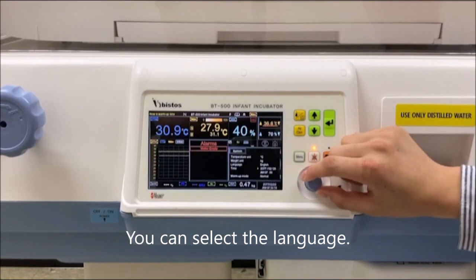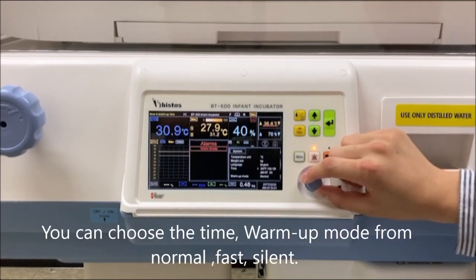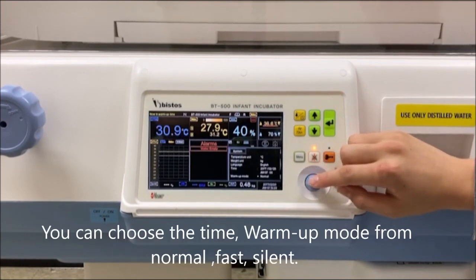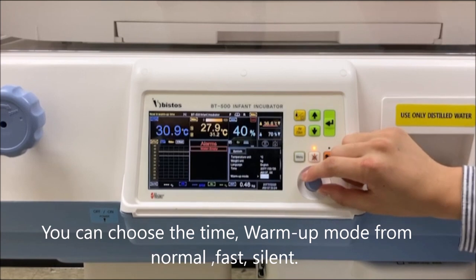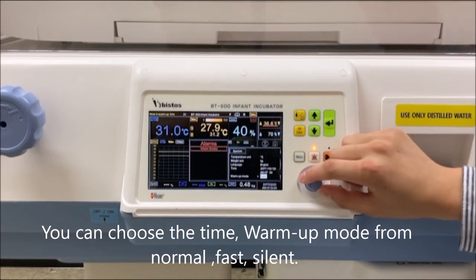You can choose the time, and you can choose the warm-up mode from normal, fast, and silent.